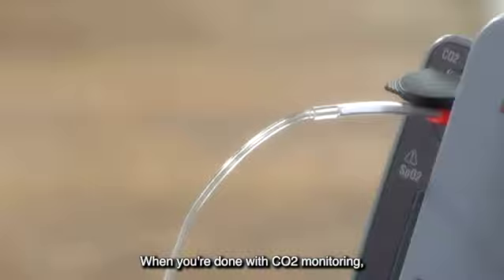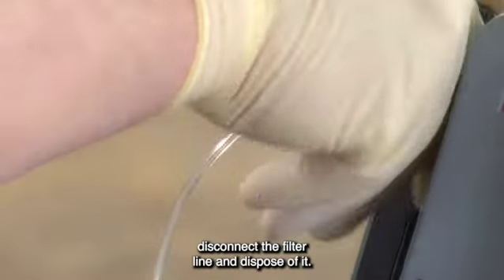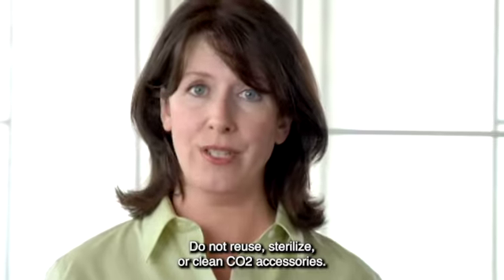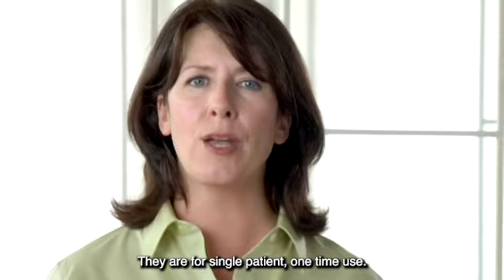When you're done with CO2 monitoring, disconnect the filter line and dispose of it. Do not reuse, sterilize, or clean CO2 accessories. They are for single-patient, one-time use.